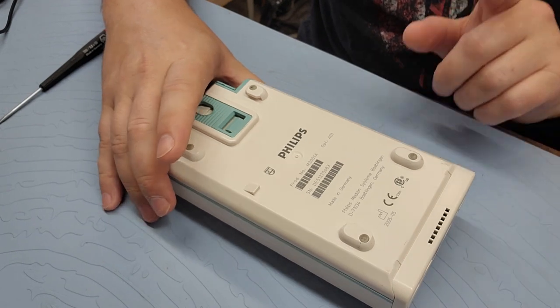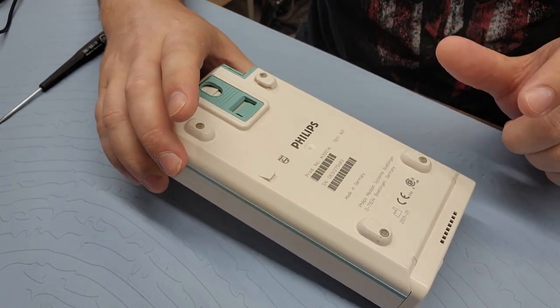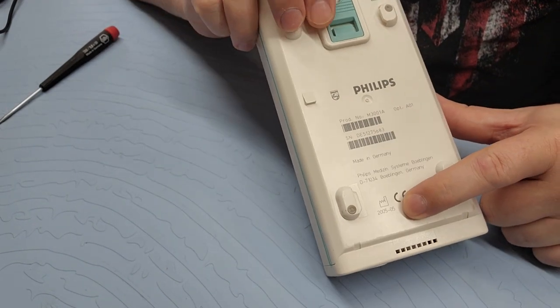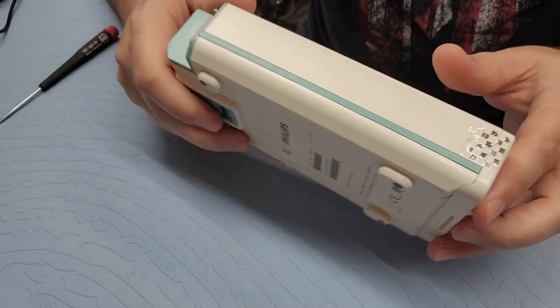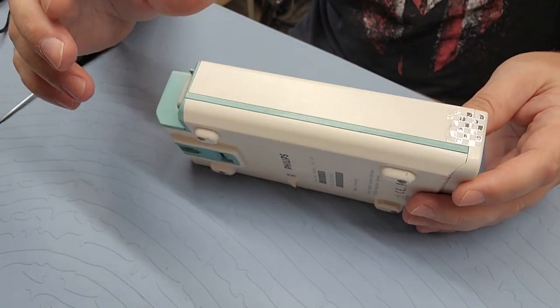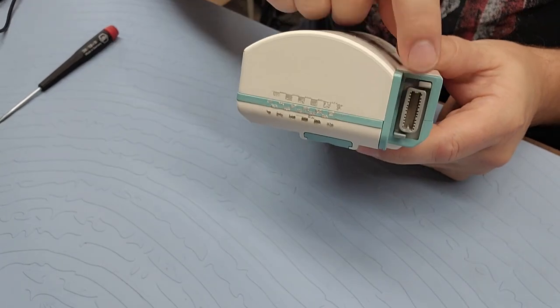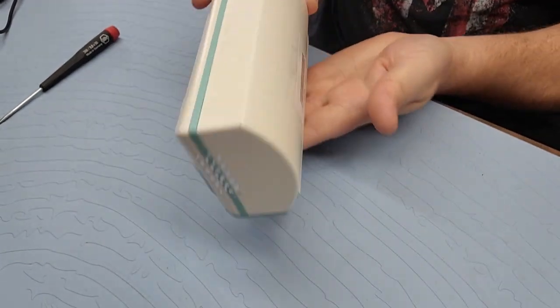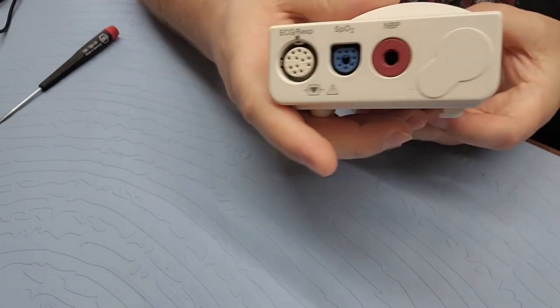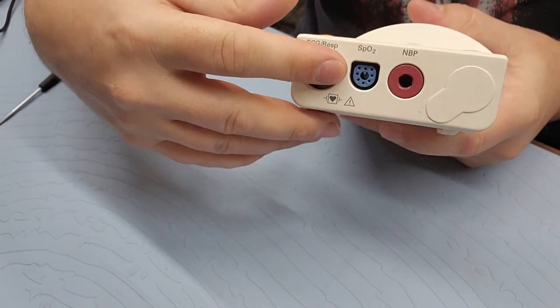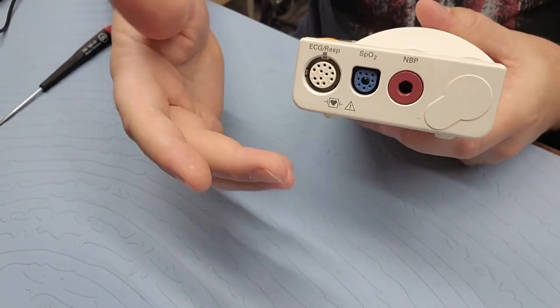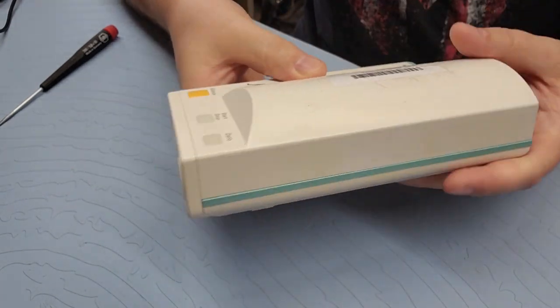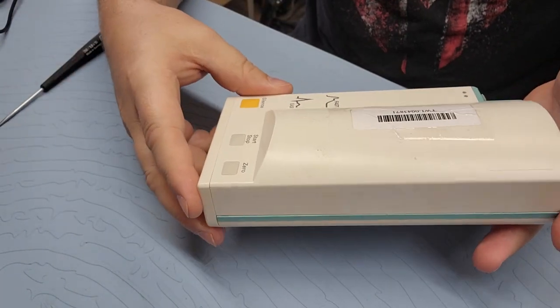You clearly have a manufacture date on the back of them and there's different variants of these, many different variants. They all use the same sort of communications port and they slide into the back of the patient monitor to which then the installed parameters are available and they pop up on the monitor automatically.